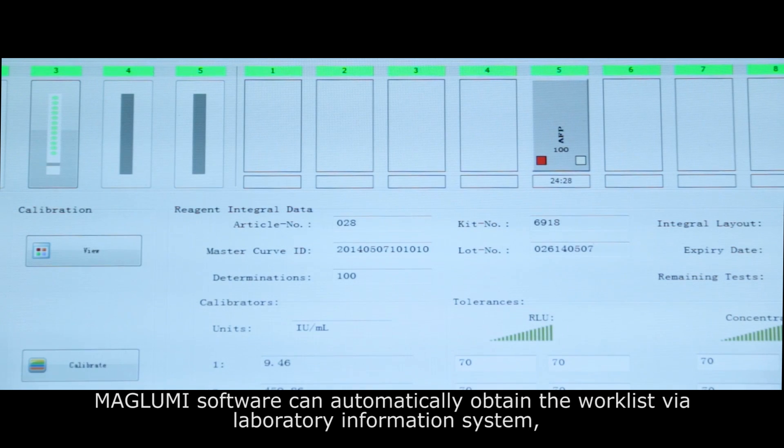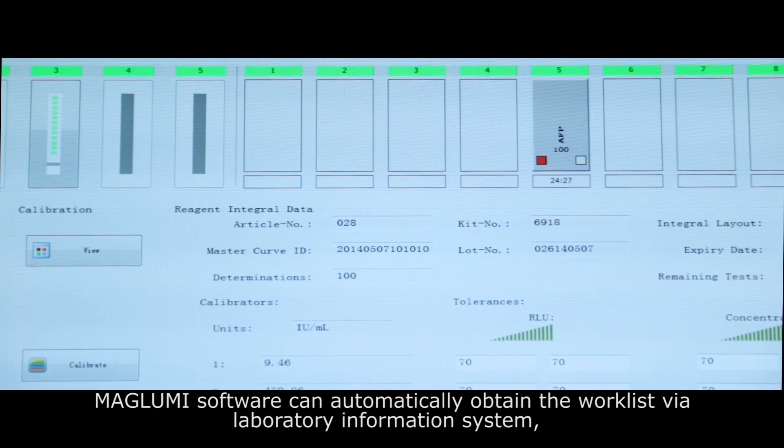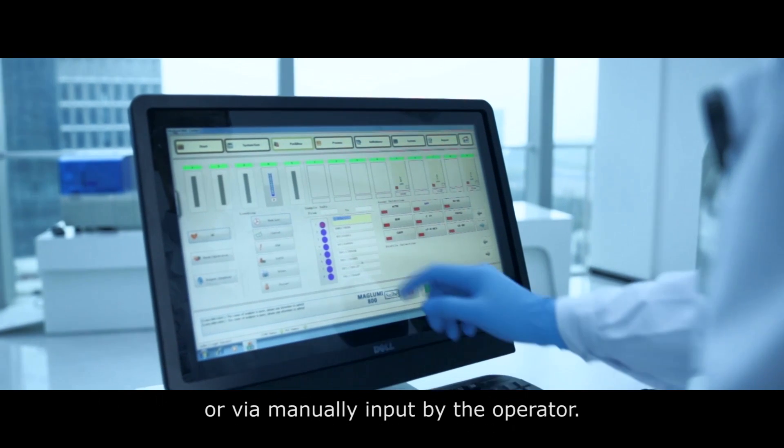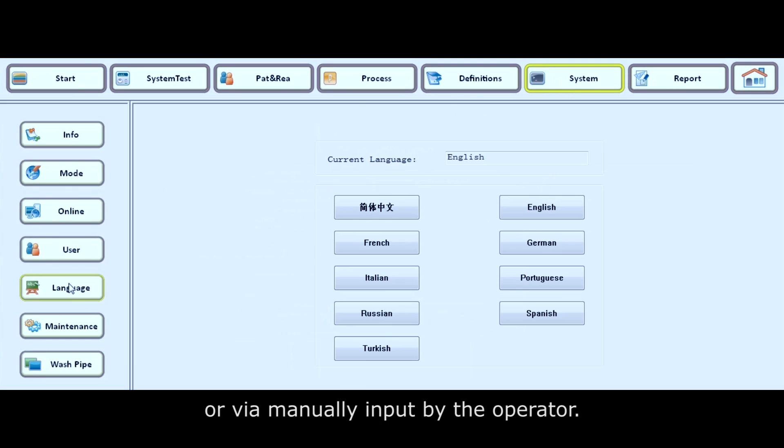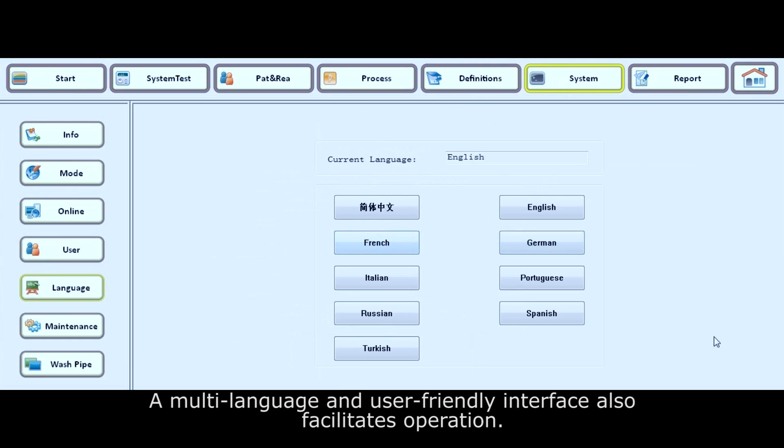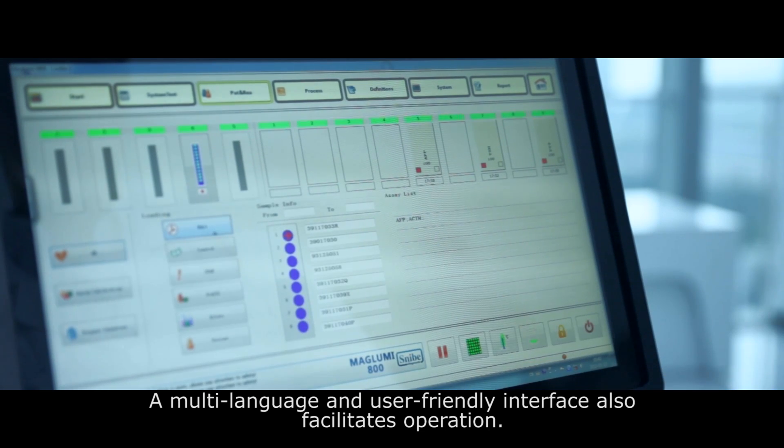Maglumi software can automatically obtain the work list via laboratory information system or via manual input by the operator. A multi-language and user-friendly interface also facilitates operation.